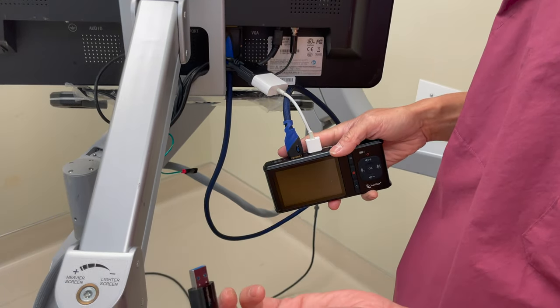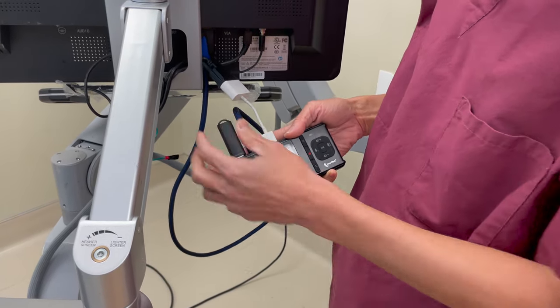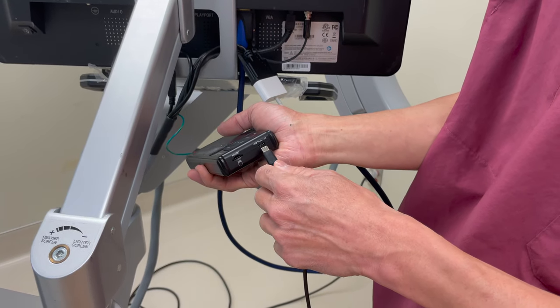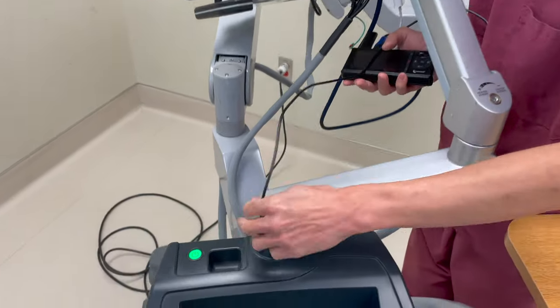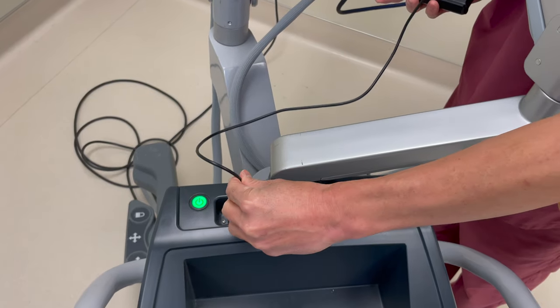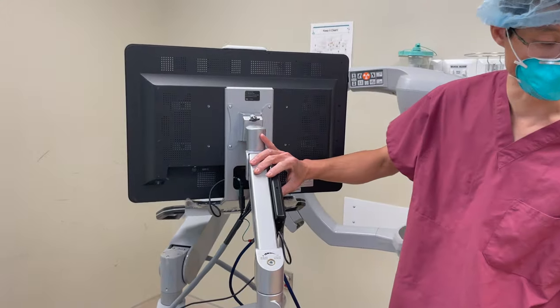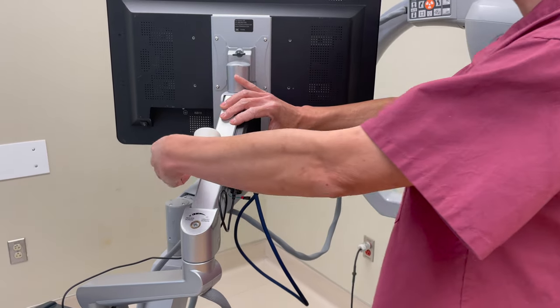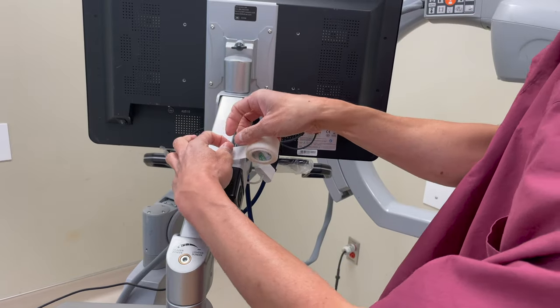Next, you can either use a micro SD card or a USB jump drive as your memory for the ClearClick — just connect it. Some of your cases will be longer, so you need more power than the ClearClick supplies on its own. It has a little USB power port — connect it. Luckily, the OrthoScan has its own USB port that's used to save photographs, but otherwise you can use it to power your ClearClick. We always take the ClearClick and secure it with some tape to the elbow or arm of the monitor so you don't end up dropping or damaging it.